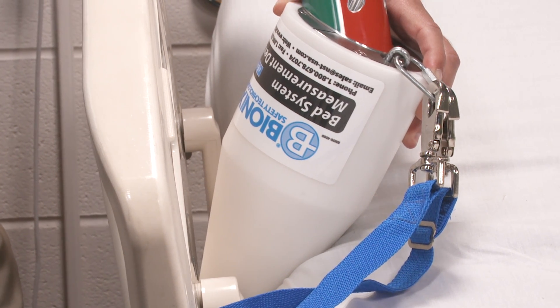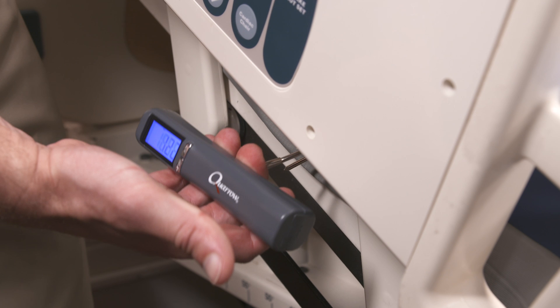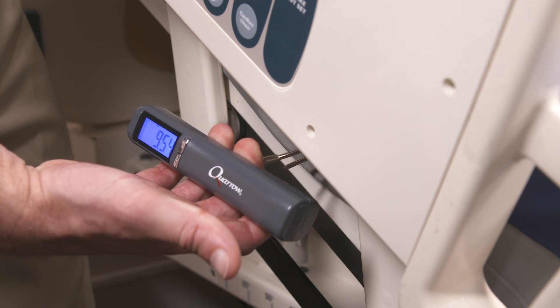Do not force the cone into the area. Attach the scale to the cone. Pull on the scale with 12 pounds of force at any angle to increase the possibility of the cone passing through the opening.